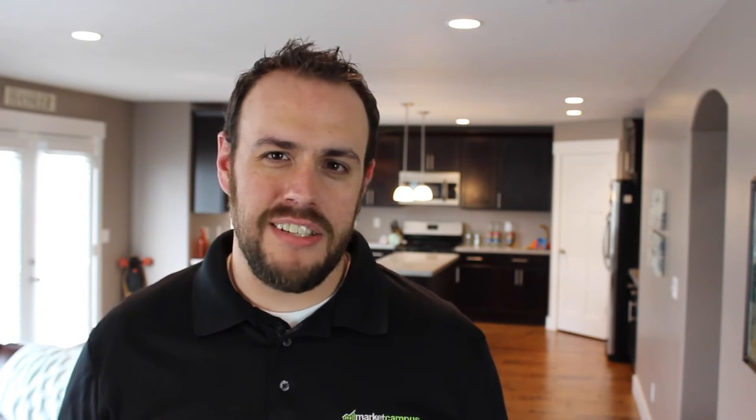And then there's the red notification. This one is not so pleasant. If you're seeing red, it's because Owlet is detecting either low or high heart rate or oxygen levels.